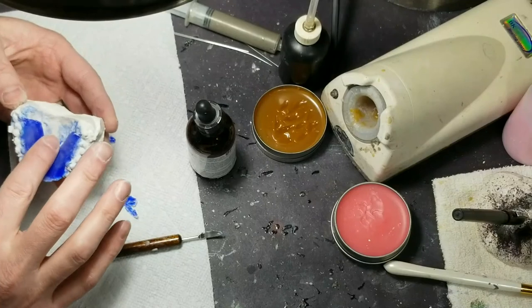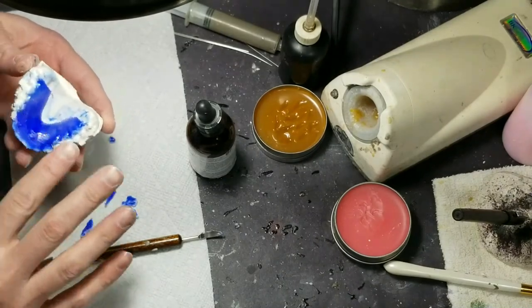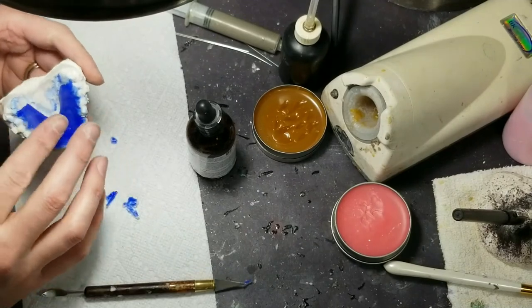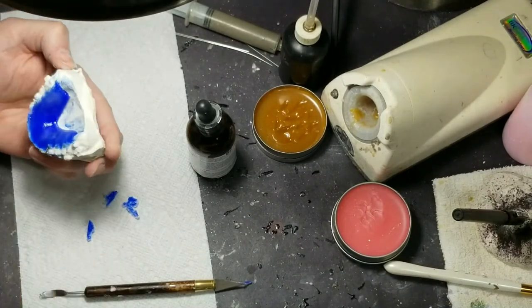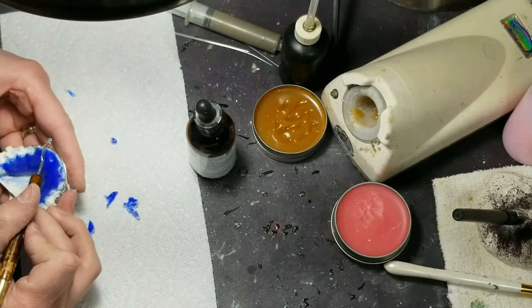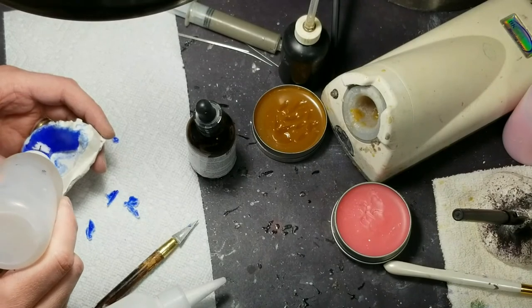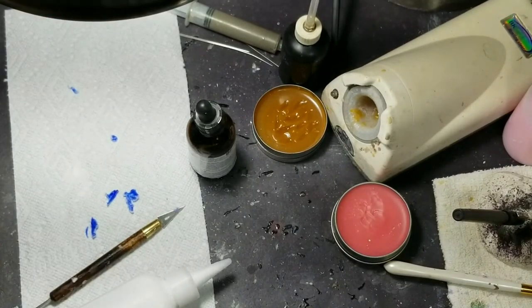I bet ocean blue acrylic powder and blue monomer — nice, I bet that looks really good. I like mixing them like that. Being in Texas we have Texas A&M — maroon and white are their colors so I get a lot of those, and burnt orange. All right, I'm ready to put this in the pressure pot. So there we go — I got it semi where I want it. You could clean up a little more if you want — you've got about 10 minutes depending on the temperature. If it's cold outside you've got a little longer; if it's hot or humid you don't have much time. I think I see a thin spot here — I'm going to add just a little bit. There we go, in the pressure pot it goes.